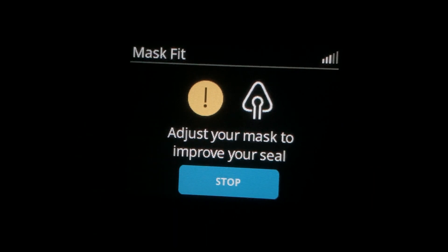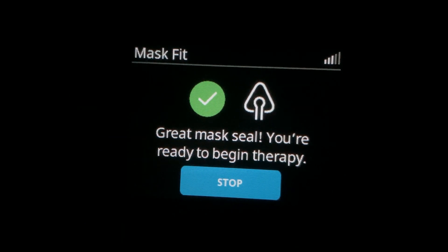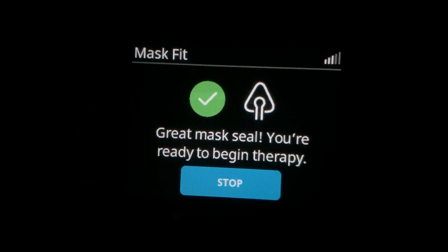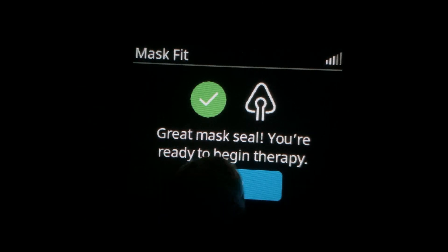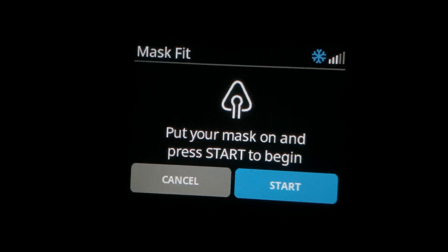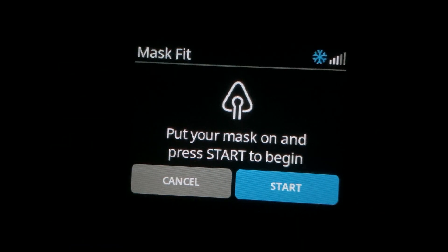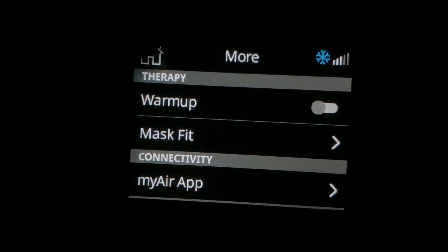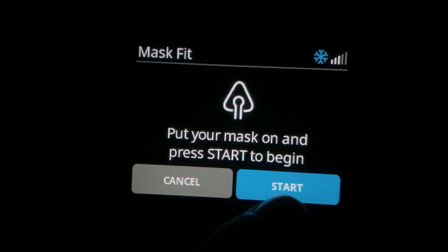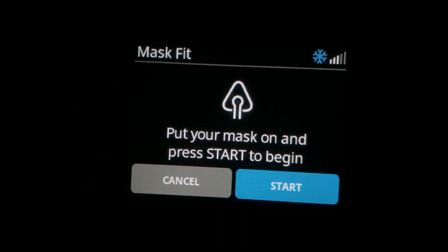If I can't ever get to the green check mark, then it would be time for me to call my medical supply company or the person that prescribed the machine for me so that I could get some help. So again, if you want to test your mask out at the beginning of the night, you're going to go into home, then go to more, then go into mask fit, say start, and run your mask fit to test your mask against the pressure it will be at during the night.